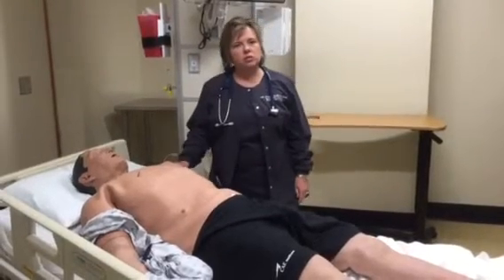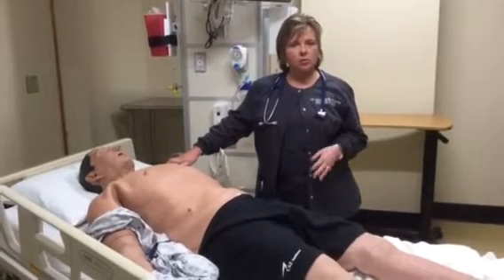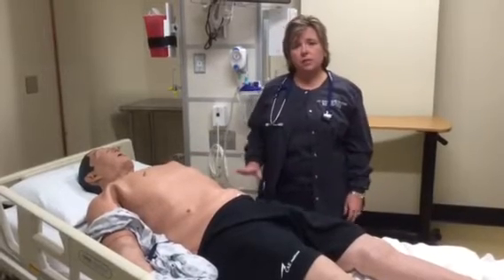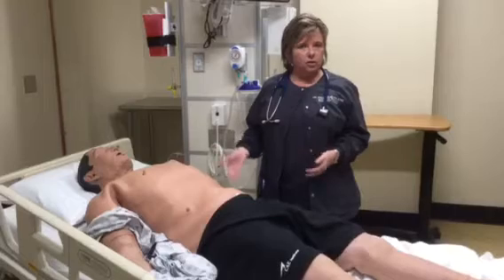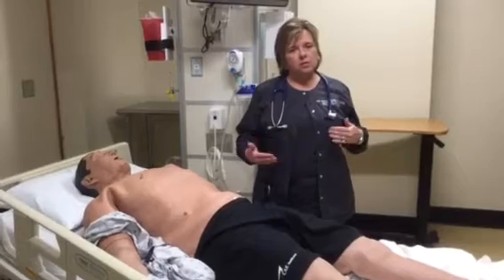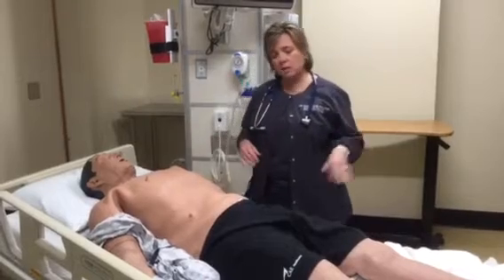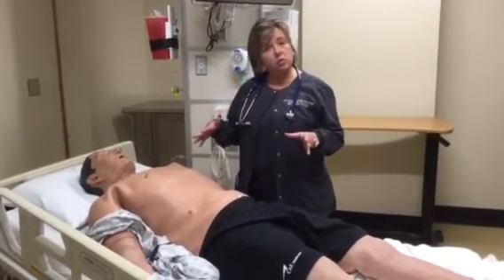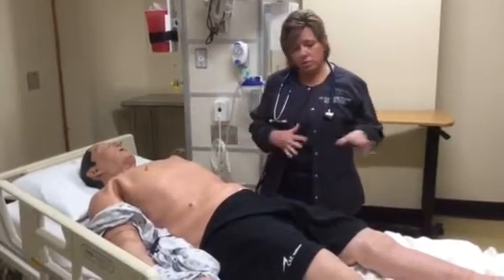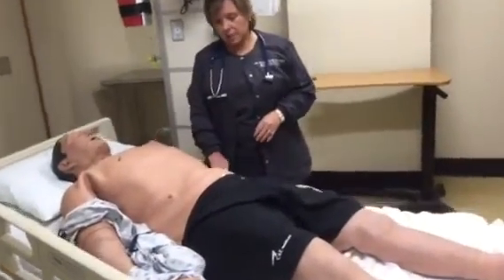Okay, this is your orientation to our iStan, which is the basic med-surg model that we have. We have two of these simulators. They're very similar. The main difference is that one of them is ventilator tolerant, so they can be on the ventilator with real settings, versus the other has to be in more of a simulation ventilator mode. So I'm just going to go over some assessment techniques that are generalized to most simulator mannequins and what they can do. So you see on iStan, he has pretty realistic feeling skin.